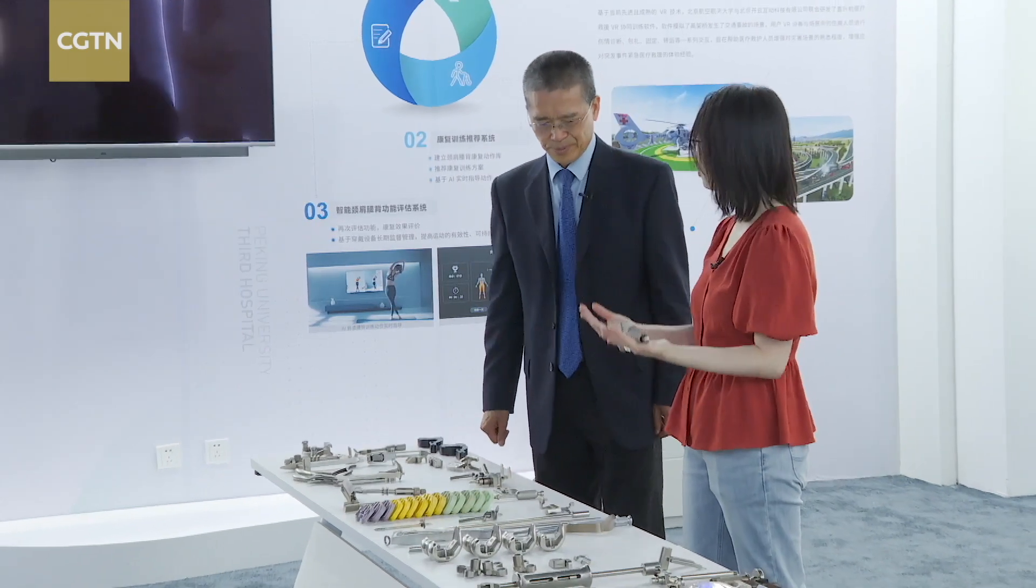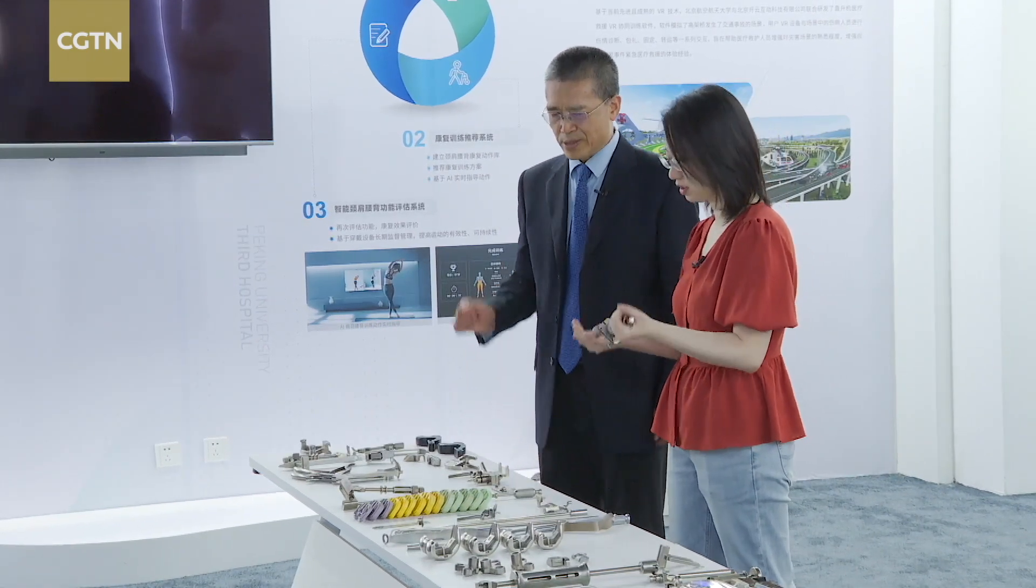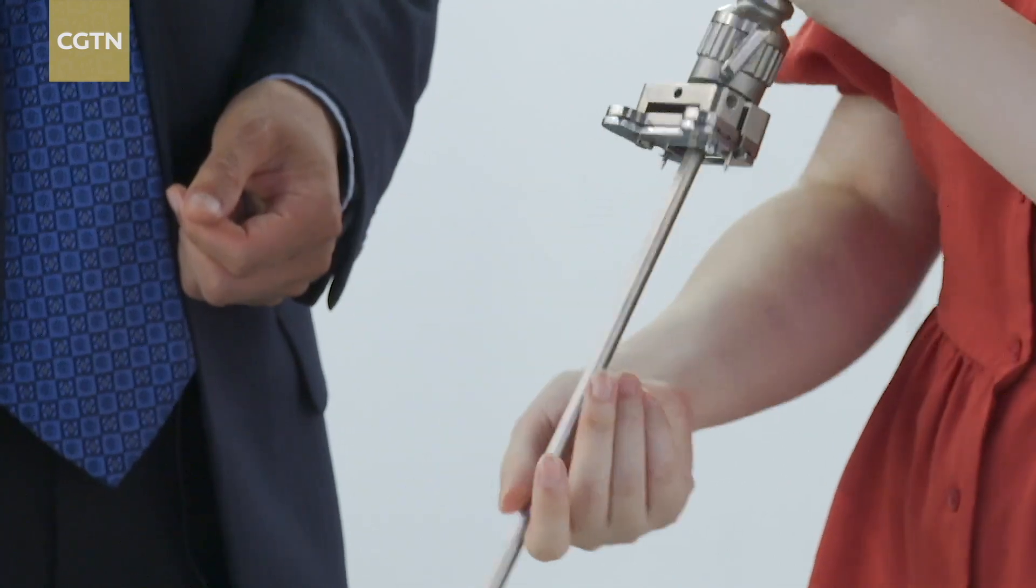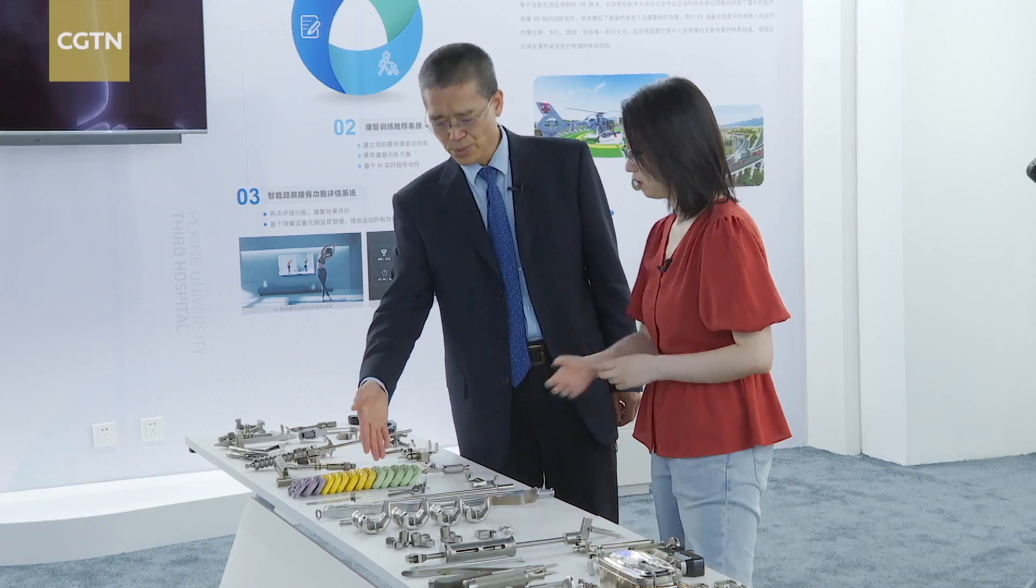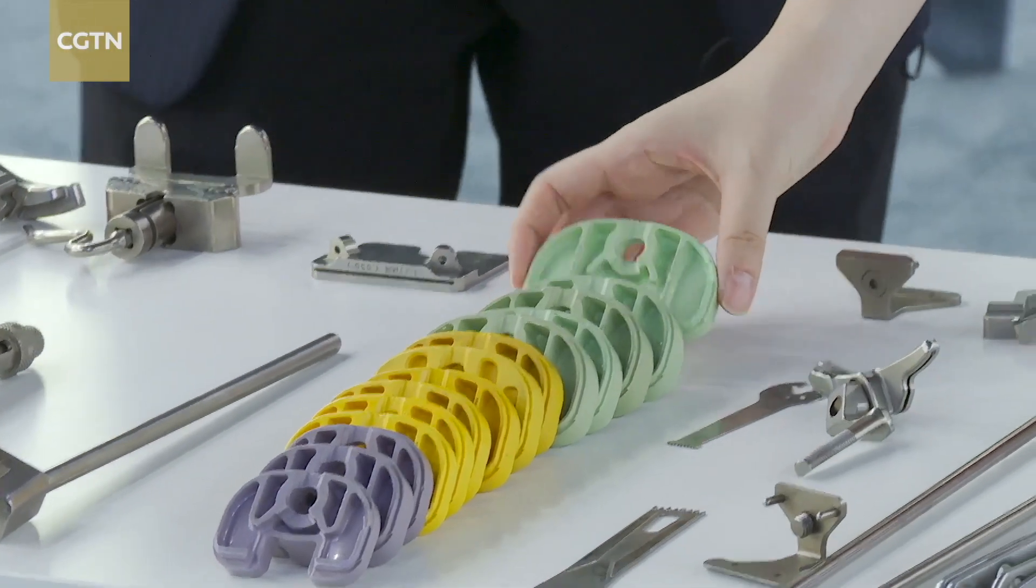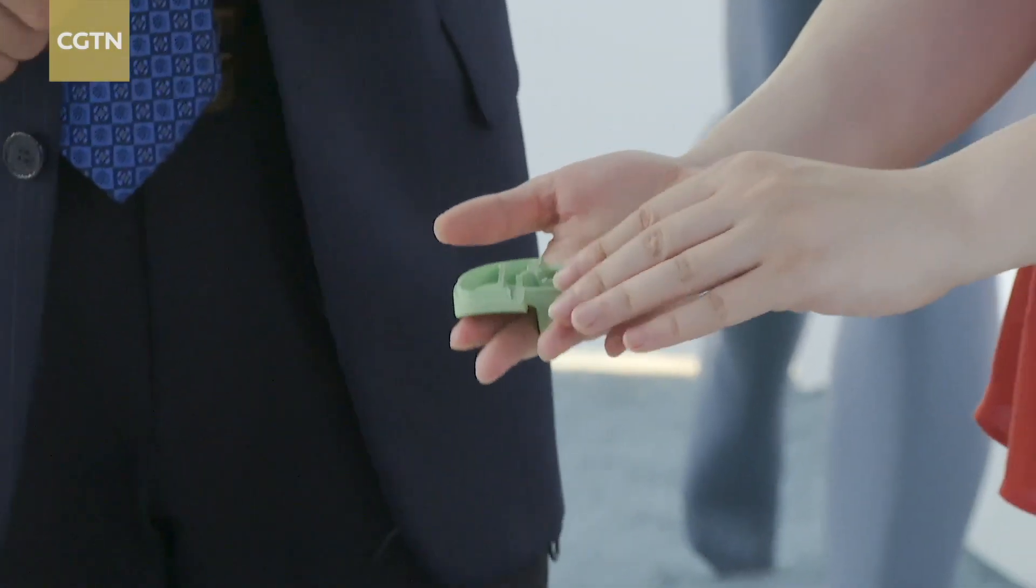But the traditional way of the surgery requires an experienced surgeon and a number of instruments. It's also carried out with standardized artificial knee sizes, which may not be the right fit for many patients.